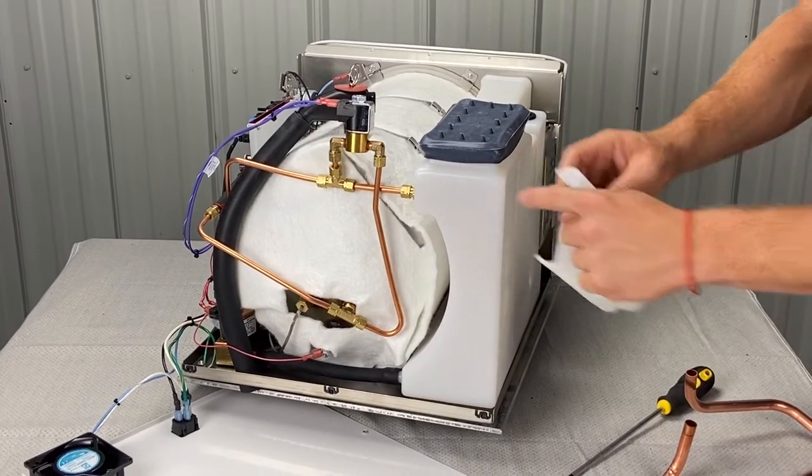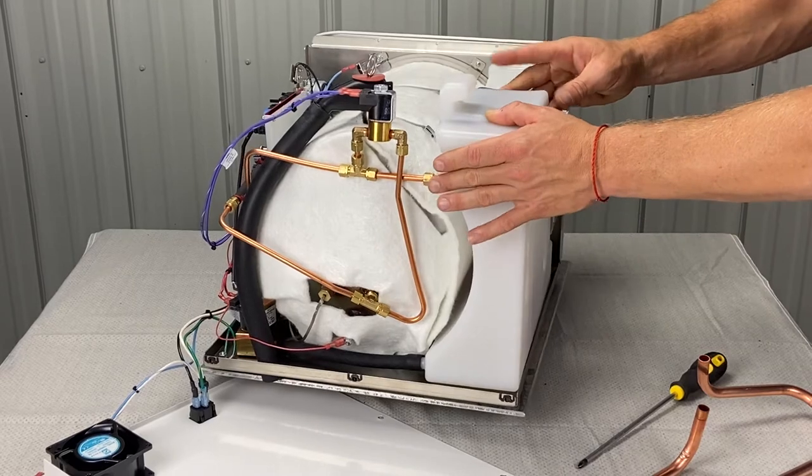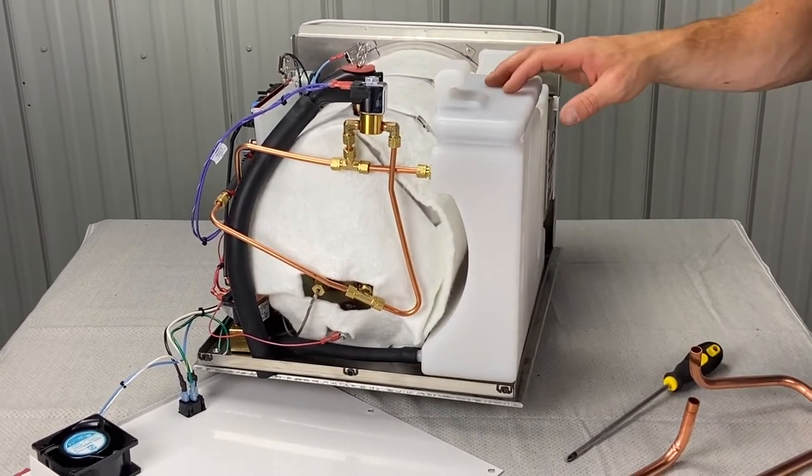We got two little lips here, they fit here. So slide this on there, make sure it's on even. If it's cockeyed, then this top cover might not fit properly.